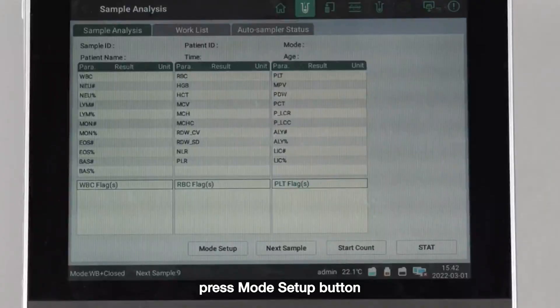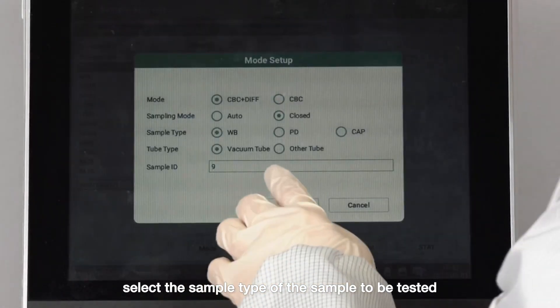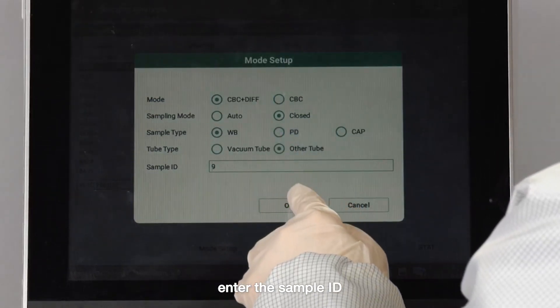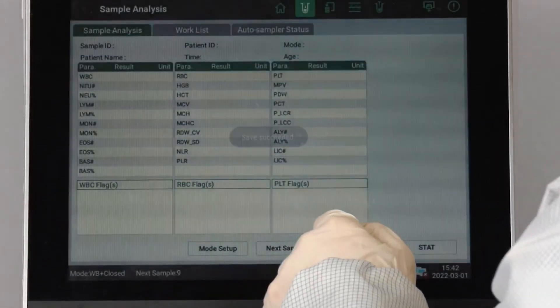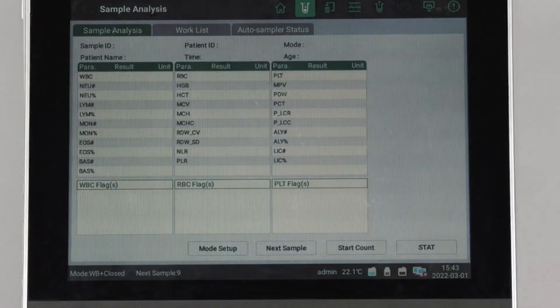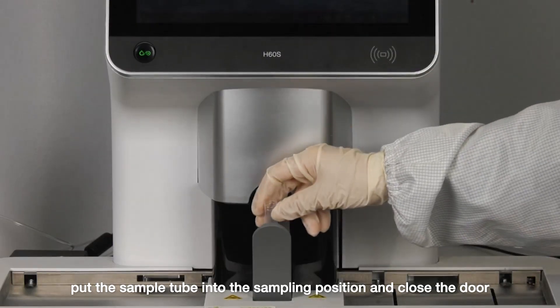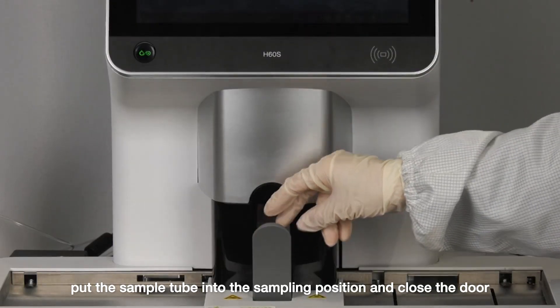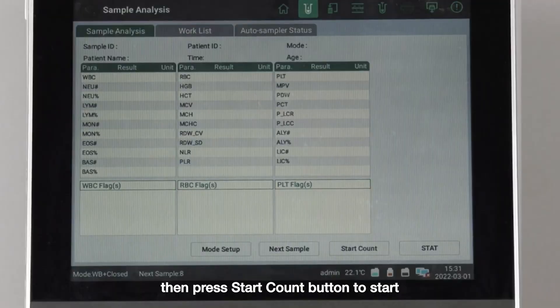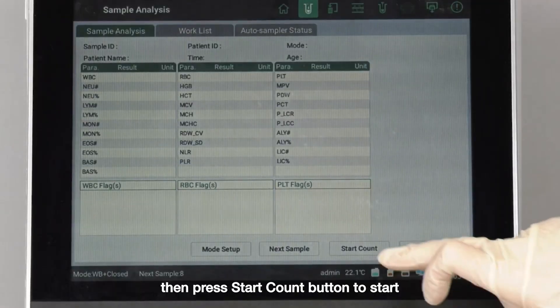Press the mode setup button, select the sample type to be tested, and enter the sample ID. Put the sample tube into the sampling position and close the door, then press the start count button to start.